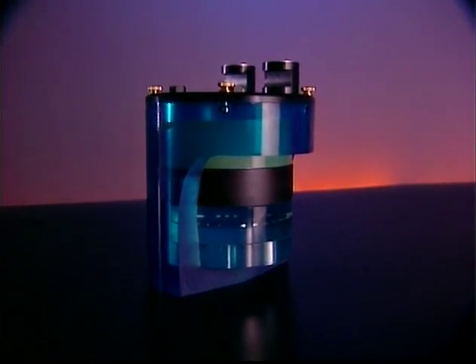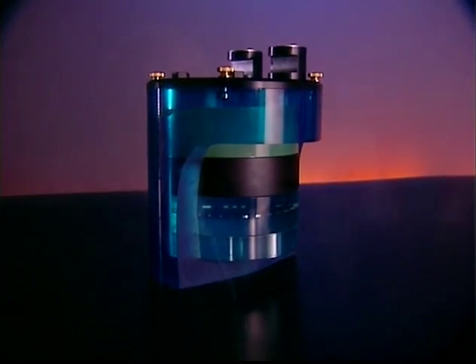After the year or two of research where we felt comfortable in establishing the basic methodologies of what was needed, we realized that we would have to work with an industrial partner, somebody who knew how to develop phantom-type materials, particularly formulate these new low-contrast plastics. So that's when we turned to working with the predecessor of the Phantom Lab in developing the original Catphan.